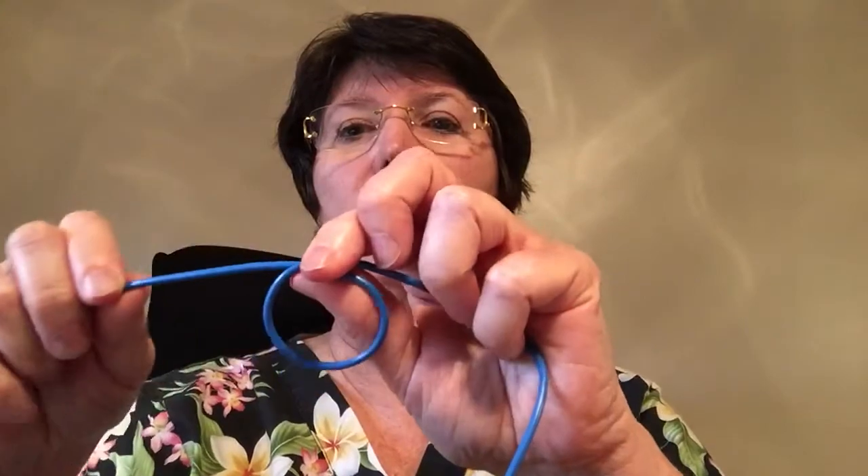Here's something I learned from a resident about how to actually set up the Bovie cord. Rather than just hanging the Bovie off the table where it can slide back and forth and become too shallow, put a little loop in the cord. That loop won't pull — it will stay secure. Fasten the loop to your table, then hang the free end over the handle of the Bovie. This keeps it off the floor and makes it available for the circulating nurse when she goes to plug it in.